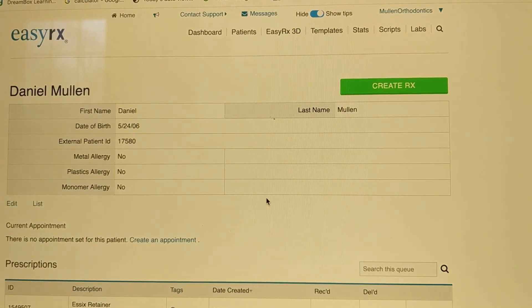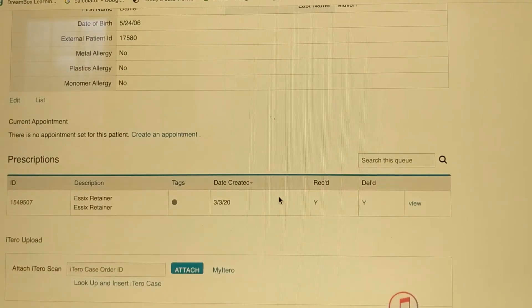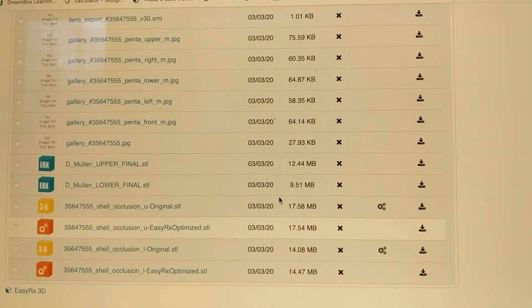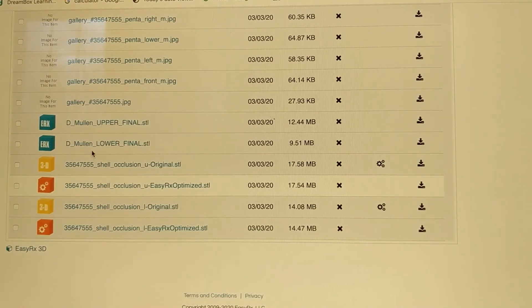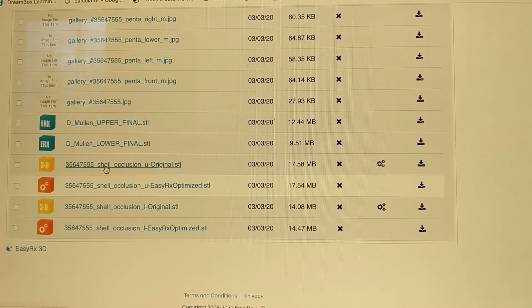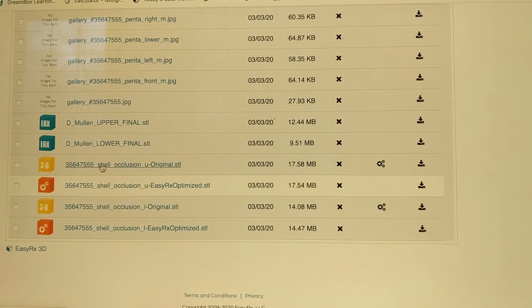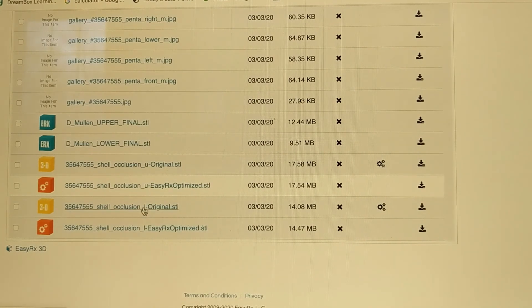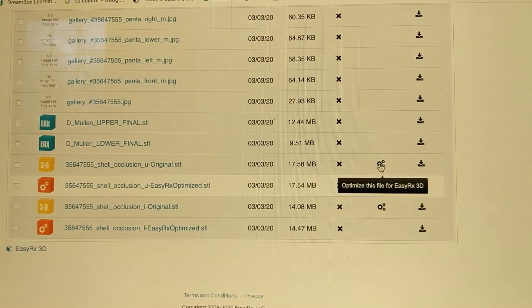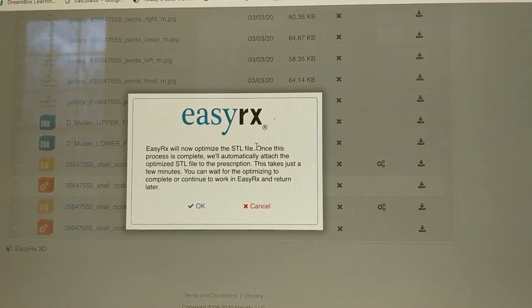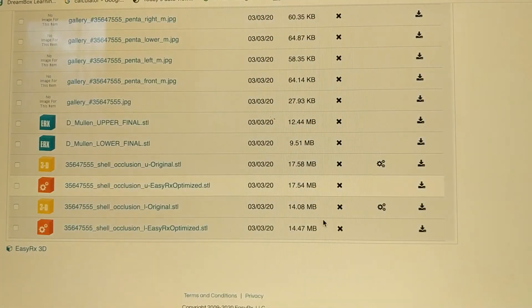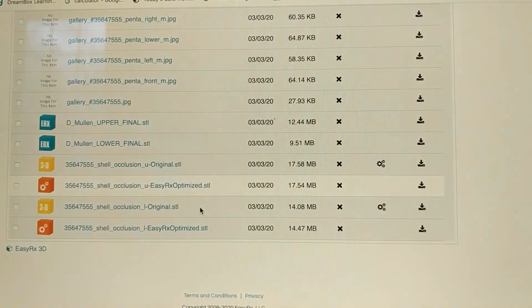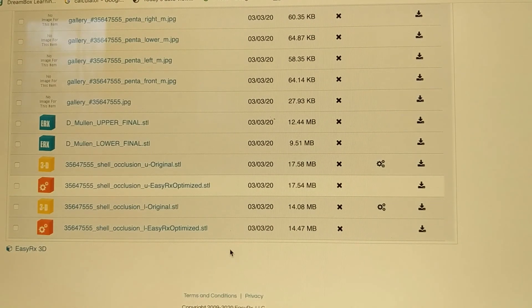So now his chart opens up. So we already created the Rx, we don't have to do that. This is an old file for him, so it has a few extra things in it, but I just wanted to show you how easy it was. So ignore these blue things. Usually this is the final file that we had done previously, but what you want to see is the yellow one first of all. Usually when you open up the file, just this yellow box with the shell occlusion upper and yellow box shell occlusion lower is in there. These little gears that says optimize the file for EZRX. So you just click on that, EZRX will now optimize the STL file. So that gets out any imperfections in it, it does it automatically, super easy. I'm going to do that for the upper and lower arch. So I clicked on the upper and lower arch to optimize. This does take a couple of minutes.